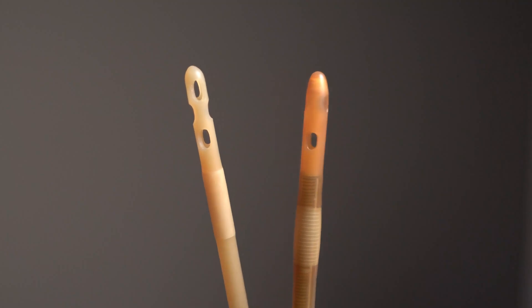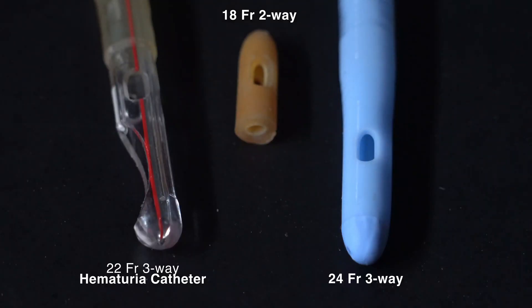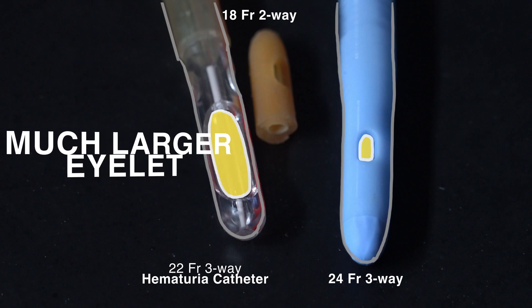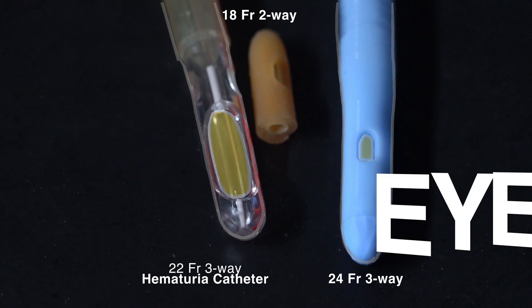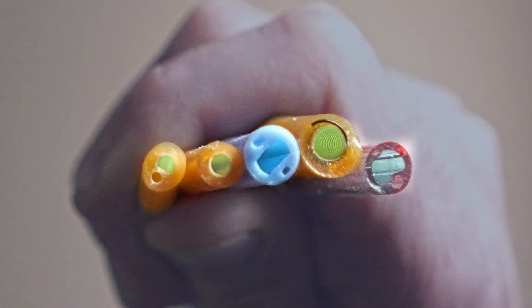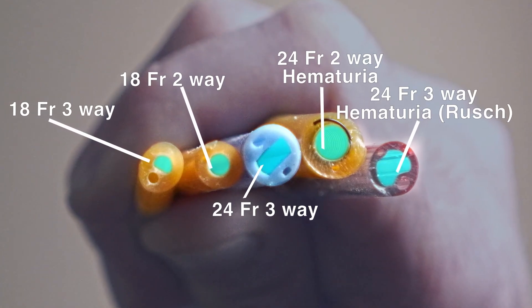To summarize, in a patient with hematuria, choose a hematuria catheter that is designed to specifically treat hematuria. These catheters are a larger size, they are stiffer, they have bigger ports, and bigger channels to pull the clots out. If one is not present, place a larger and stiffer catheter that your institution has that will allow irrigation better if needed. Choosing a smaller catheter for hematuria may actually be harmful and require the patient more pain later as it does not remove the clots and will have to place new Foley catheters.